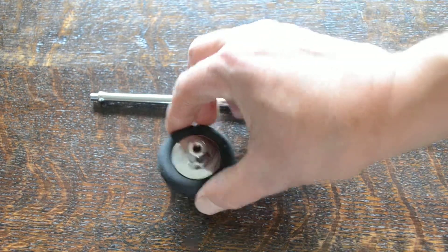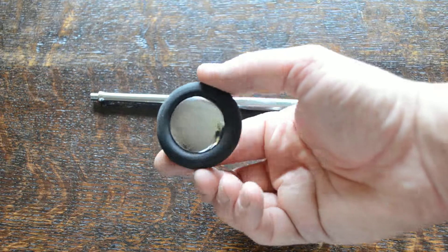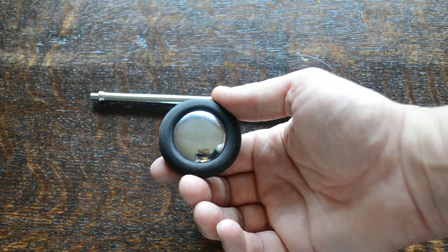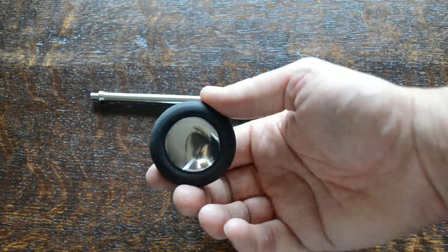The head is a nice size, a full-size piece, about five and a half centimeters in diameter.